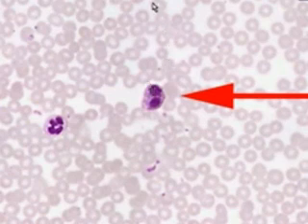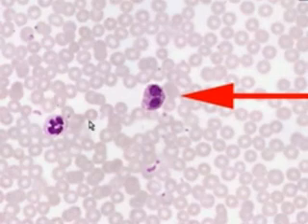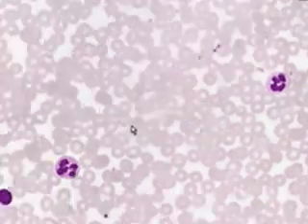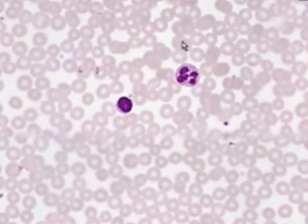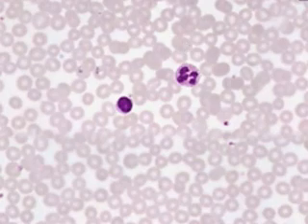So I think we covered it all. We covered the red cells, the platelets, the neutrophils, the eosinophils, the lymphocytes. I think we had a nice macrophage and a basophil as well. And once again, on the basis of the few things we looked at here repeatedly, I don't think there is anything on this slide that you cannot identify if somebody asked you to identify. Thank you very much.